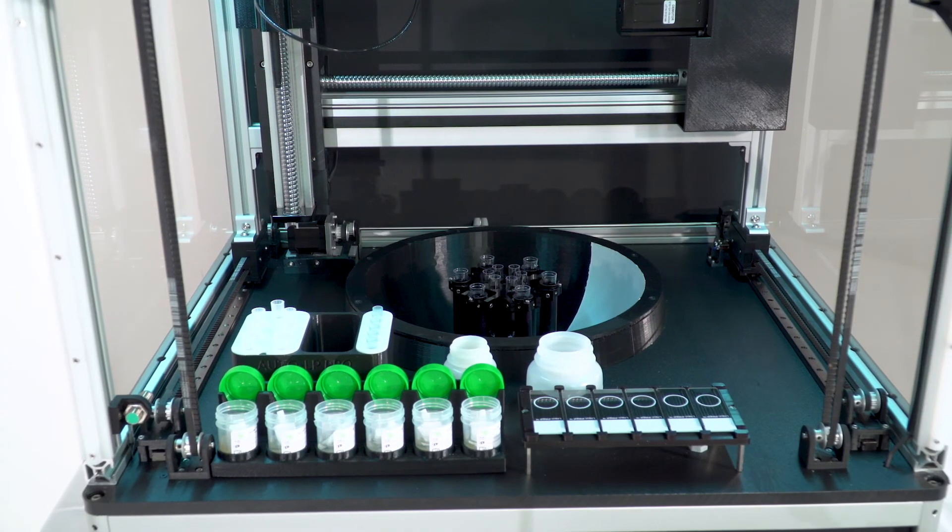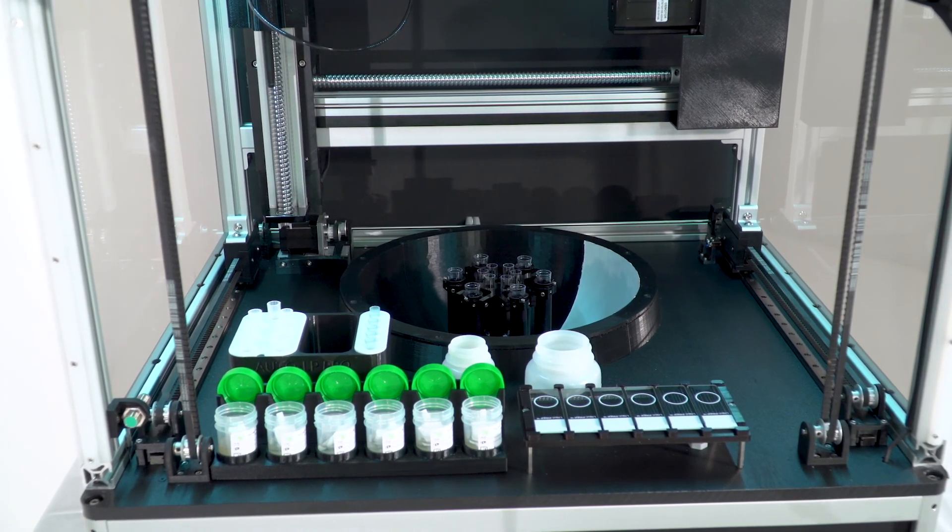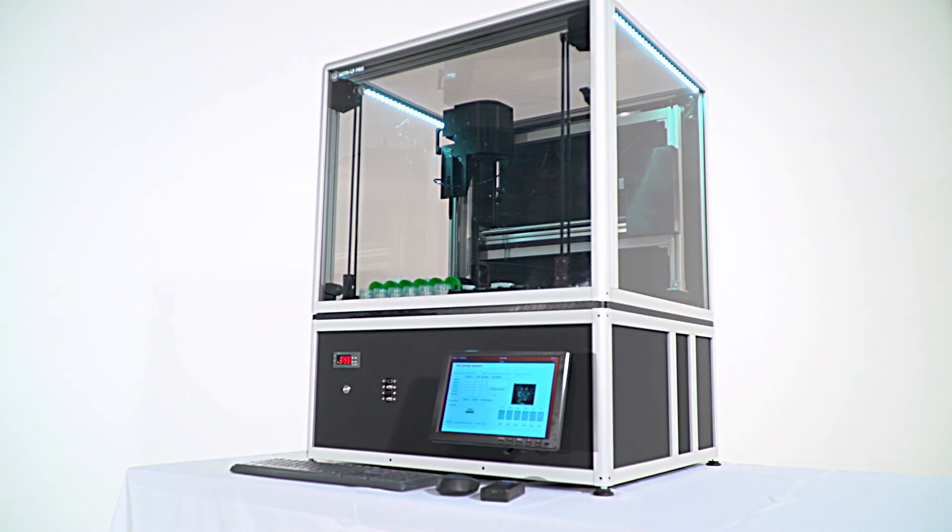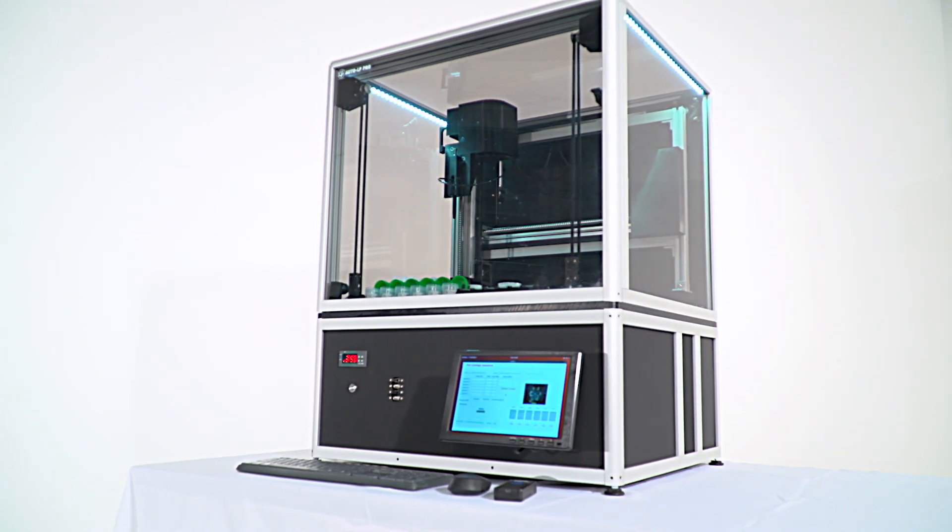The AutoLP Pro is the only system on the market with a manual backup in the rare case it is needed. The AutoLP Pro will process most cytology specimens and provides a QC run report for each batch of specimen processed.